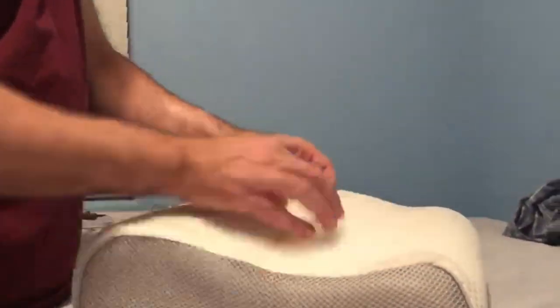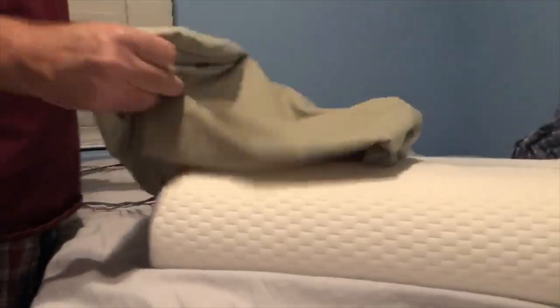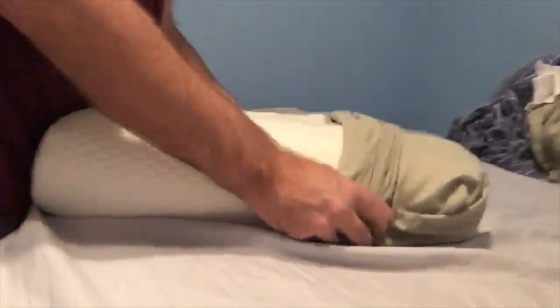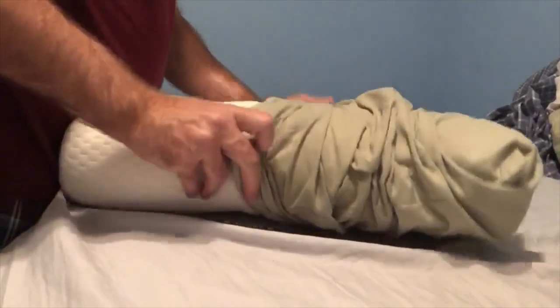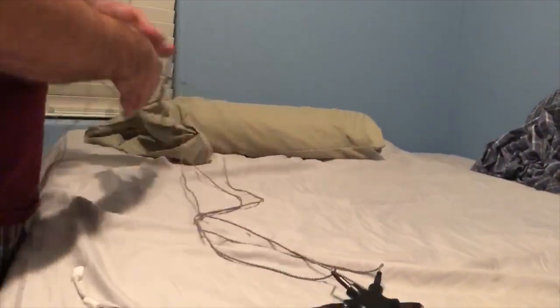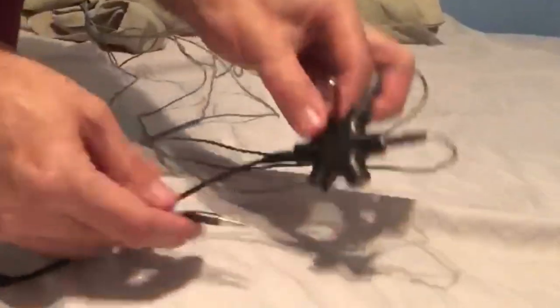When I tried this out I was really happy. I found that I needed a fairly low sound level, which surprised me with how loud my tinnitus has been. I've had tinnitus for 29 years now and all I need is a little bit of sound coming from the pillow and it overrides the tinnitus that I have.